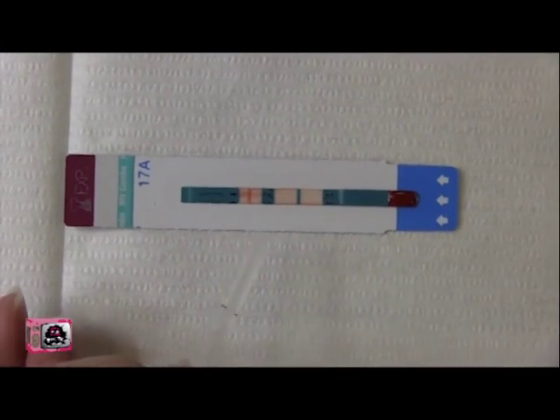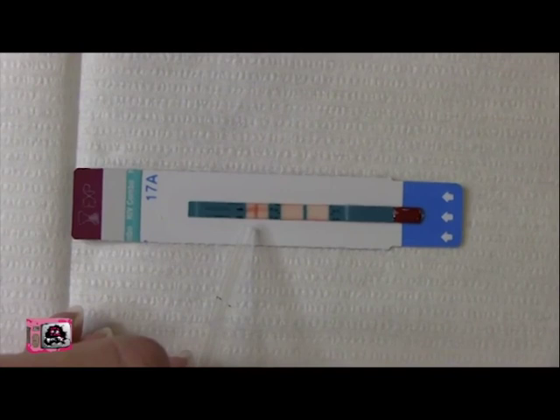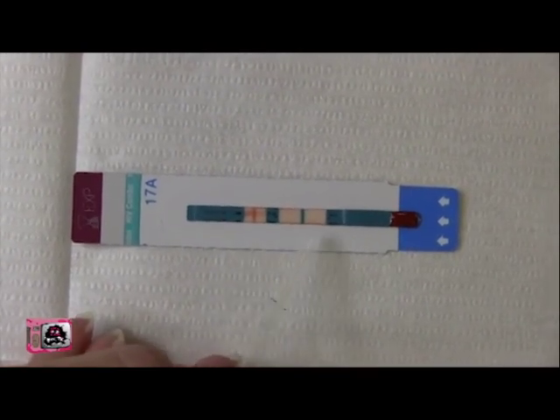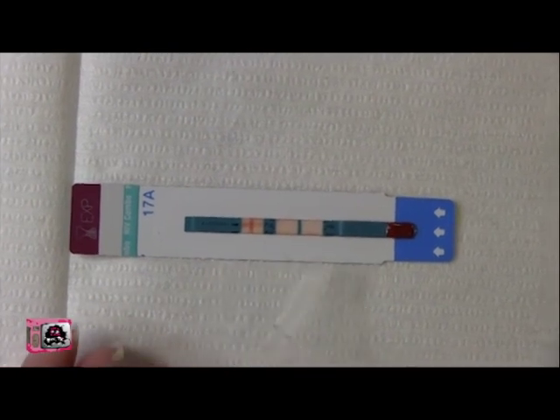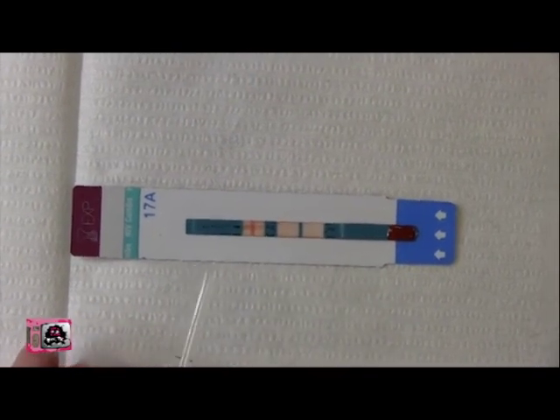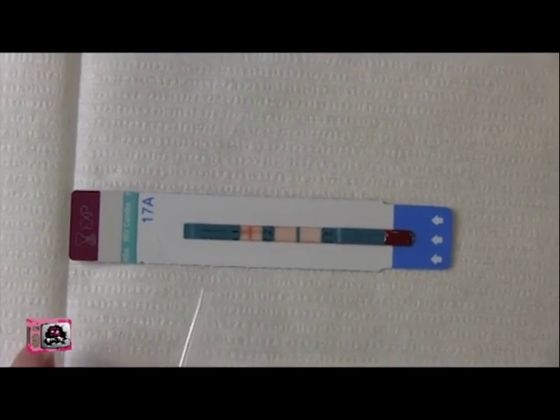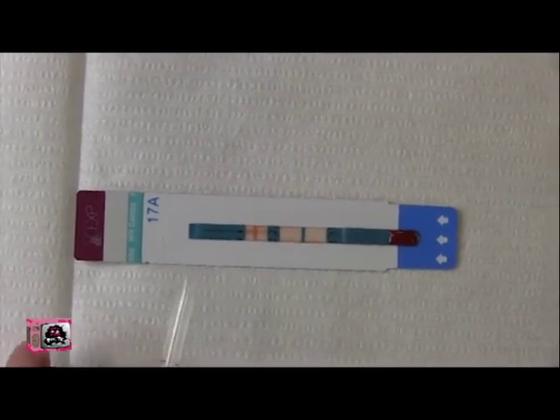As you can see here this test is non-reactive. There's a line here that means that the test was working but there's no line here or a line here which would indicate an exposure to HIV. So this test, if you've been more than 90 days since a potential exposure to HIV, is considered negative.